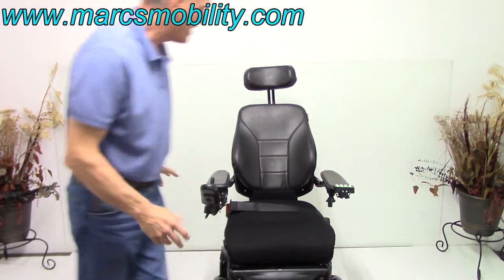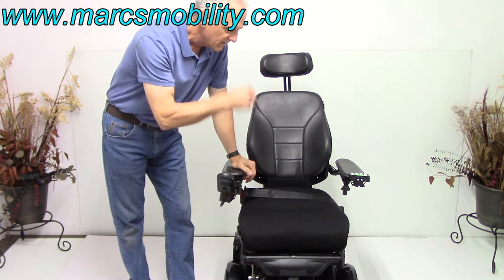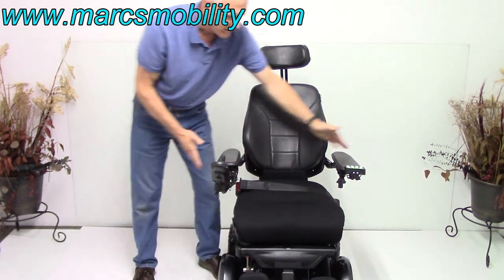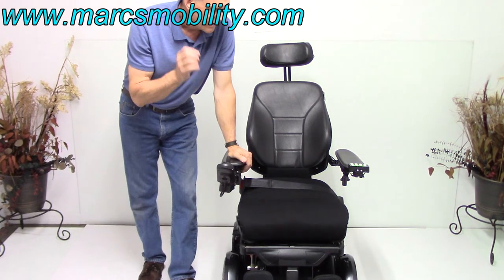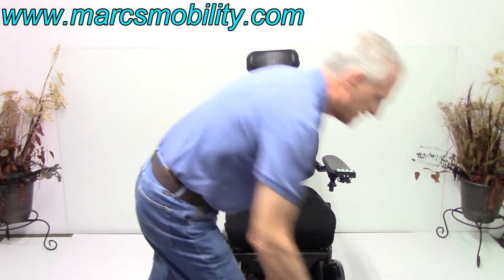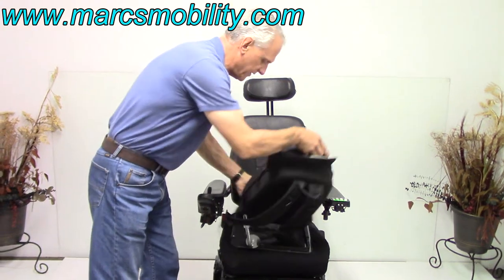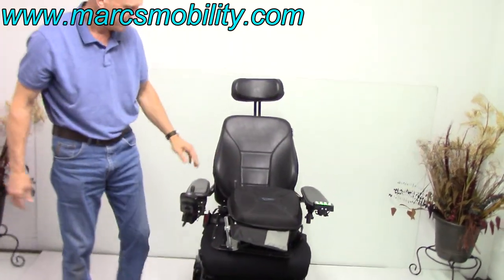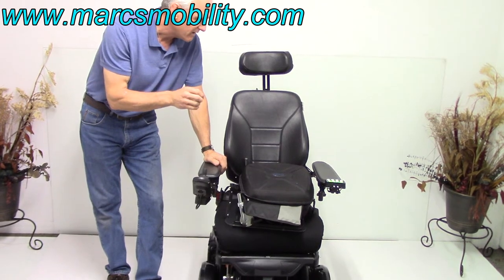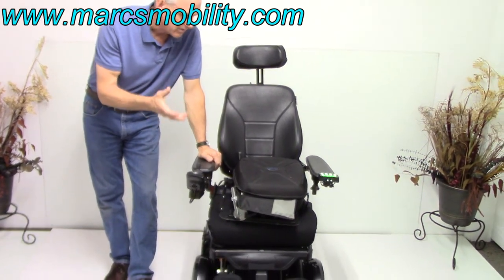So if you're looking for a power chair that's not huge — a cross between a C500 and a C300 — this is a little bit smaller and more maneuverable. It's only 24 inches wide, so you need 24 inches to get through your doors. You need a chair with an 8-inch seat lift, electric tilt, electric recline, and electric legs — you're going to get all of that plus the tray, the traveling bag, and the owner's manuals. Everything comes with the chair. It rides really good and it only has 12 miles, so it's practically new.